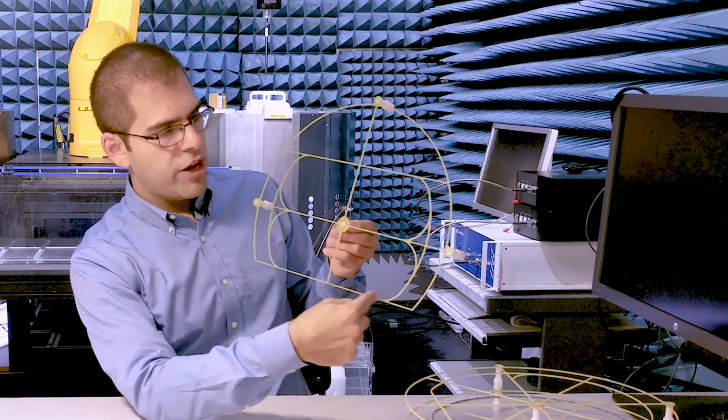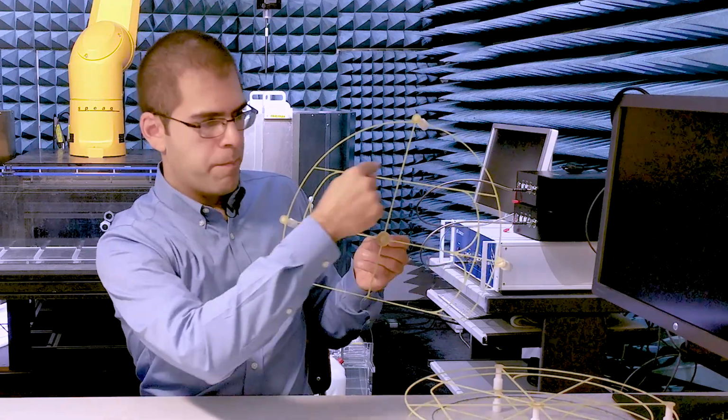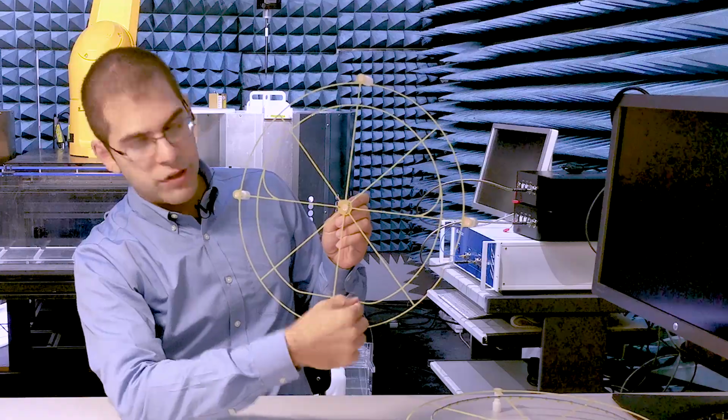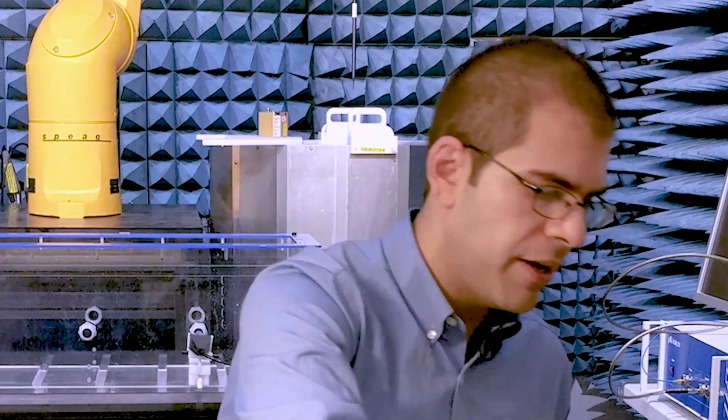So one is an oval shape, like this. One is an S shape, like this. And one is an E shape, like this. Each routing can be used clockwise or counterclockwise for a total of 6 possibilities. However, as Aiping Yao showed in her thesis, only 2 routings are necessary to robustly validate most implants.